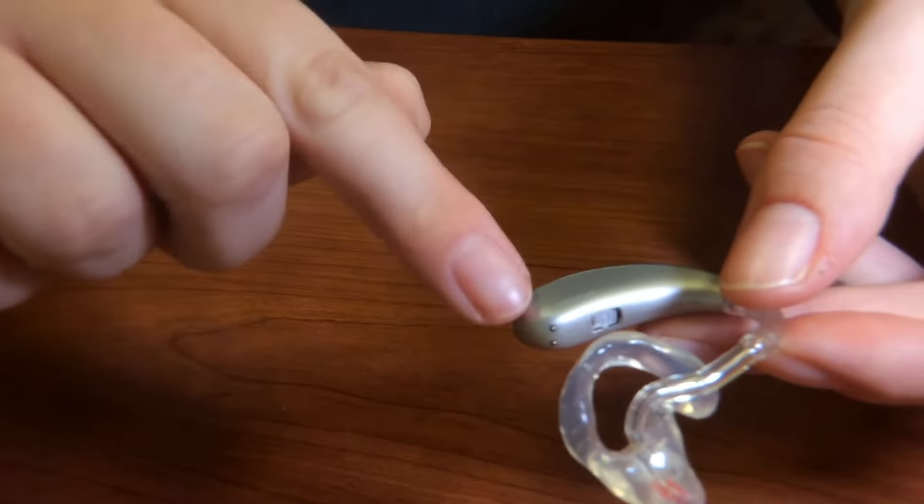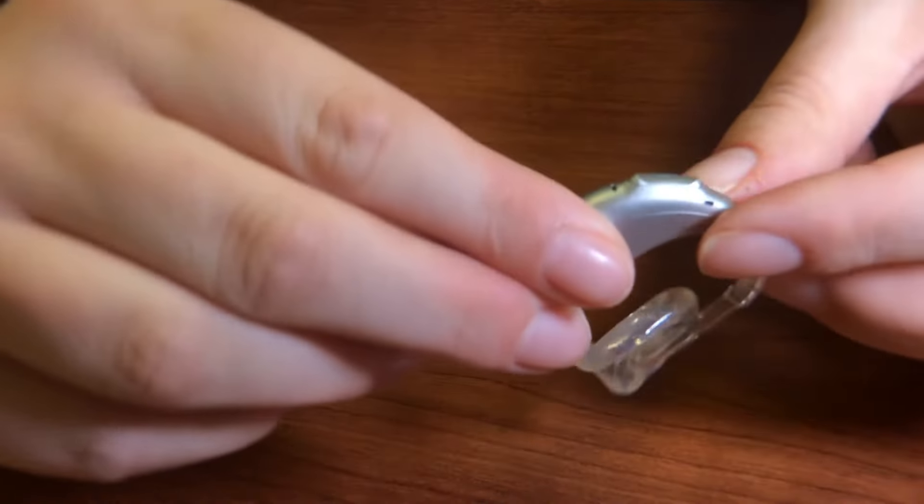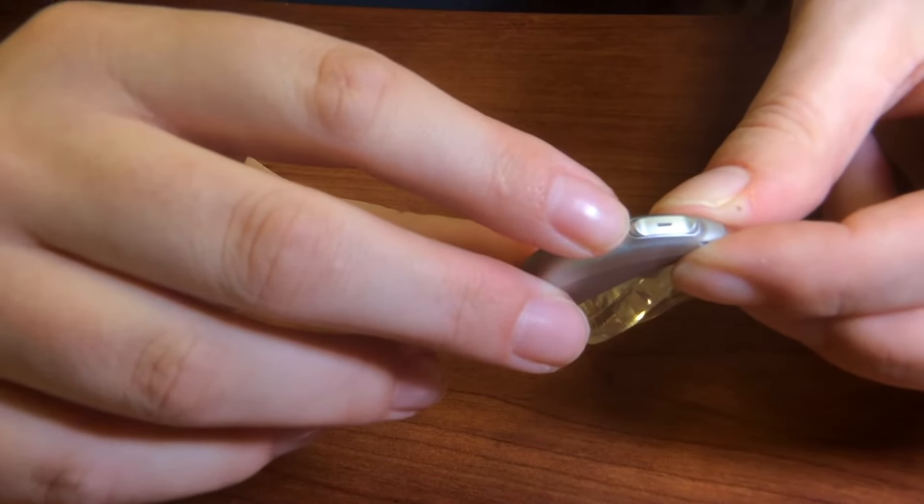And this is the body of the hearing aid, where you'll often find controls for volume and program changing.